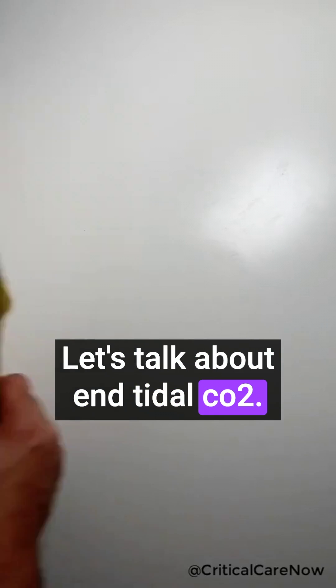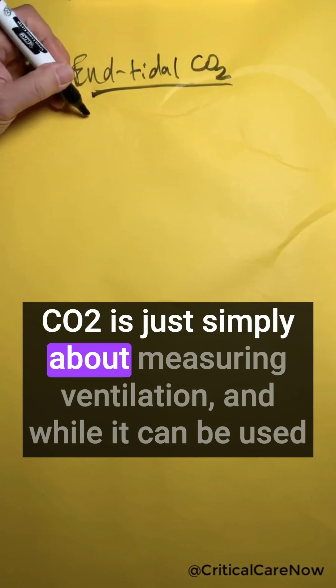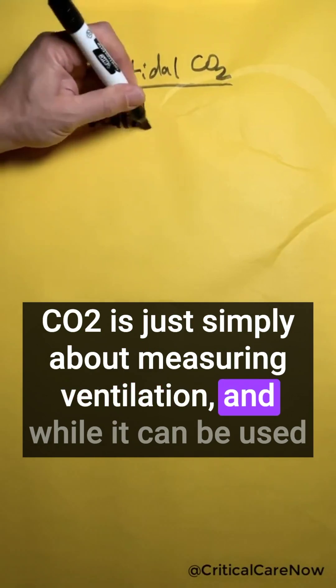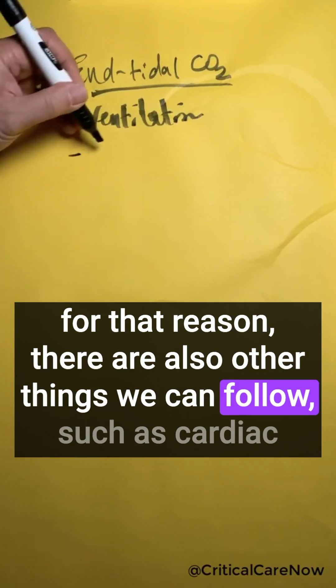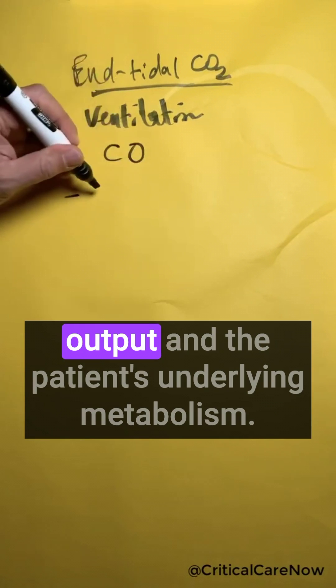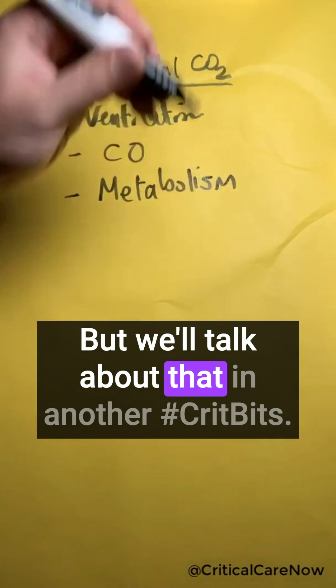Let's talk about end-tidal CO2. Many people think that end-tidal CO2 is just simply about measuring ventilation. And while it can be used for that reason, there are also other things we can follow, such as cardiac output and the patient's underlying metabolism. But we'll talk about that in another CritBits.